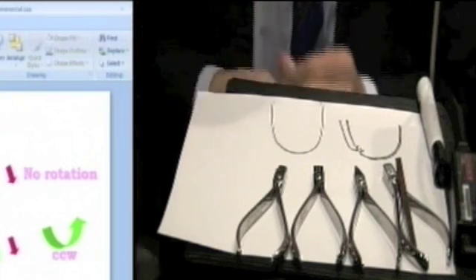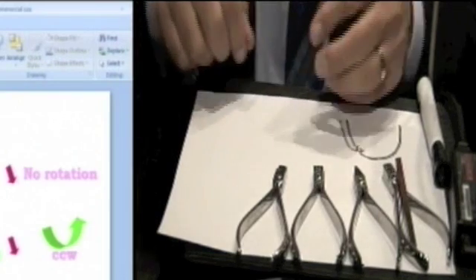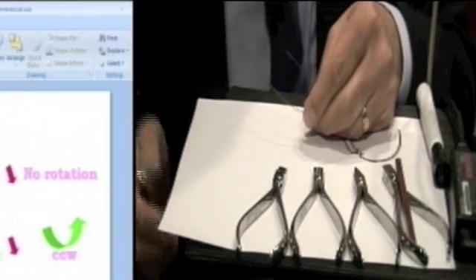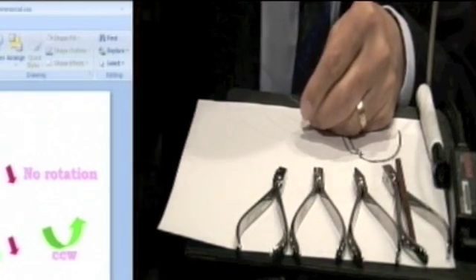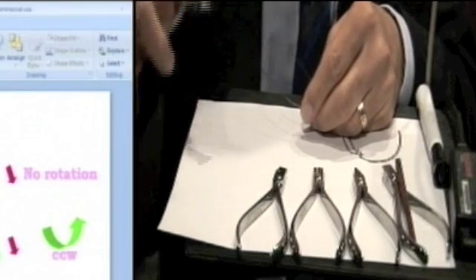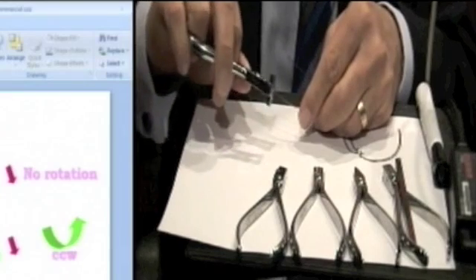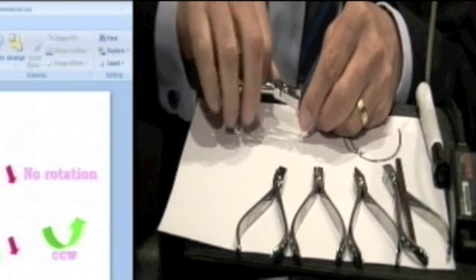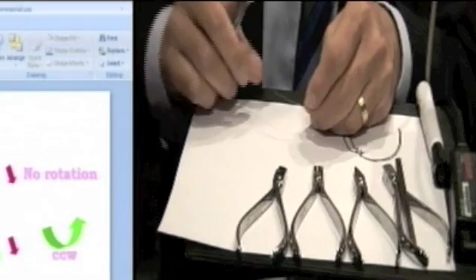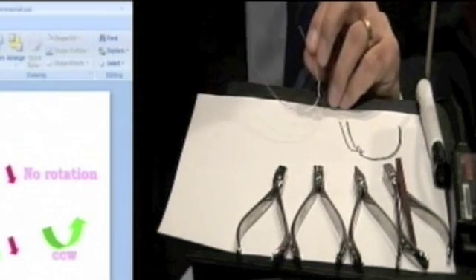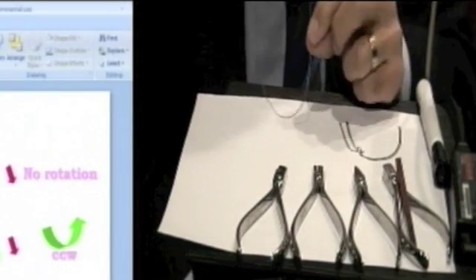Now if that doesn't work and you want to give it a little bit more oomph, you have two choices. You can waste money and buy the next hammerhead and get a new plier and put in like a two millimeter offset, or using the same plier, you just put in another offset. Can everyone see that?